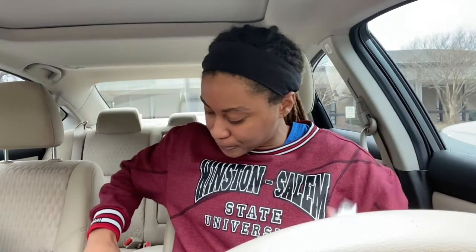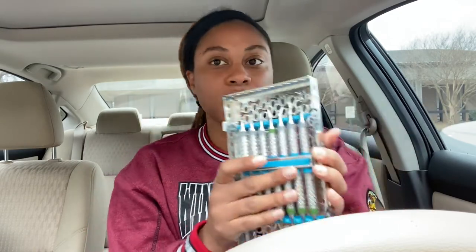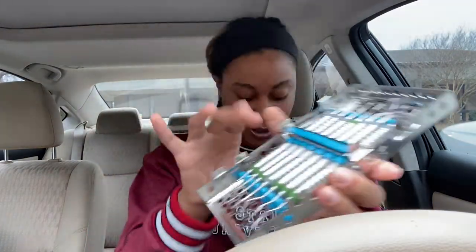So I have my mirror, what looks like my pigtail explorer, my 11-12, my probe, Nabors probe. This looks like a one-two — I'm not sure what these are unless I look at the number. And these look like all of my curettes.